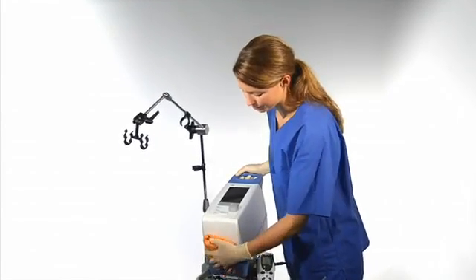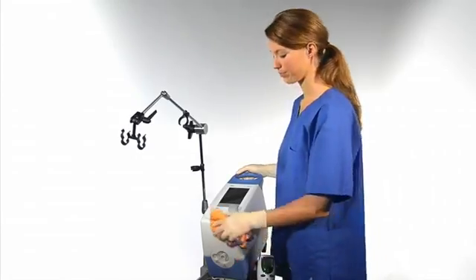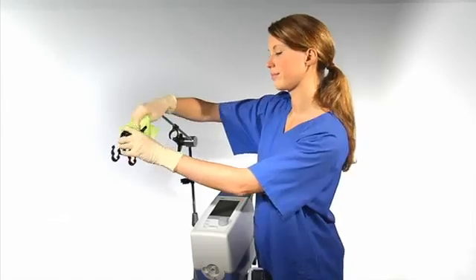Wipe the surfaces with a clean, damp, lint-free cloth without using corrosive detergents. Wipe surfaces until they are free of all spots and dry them.